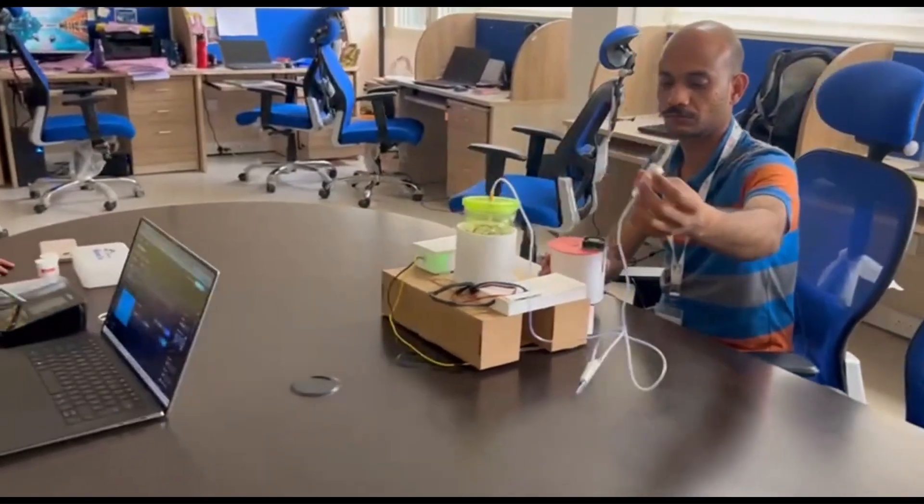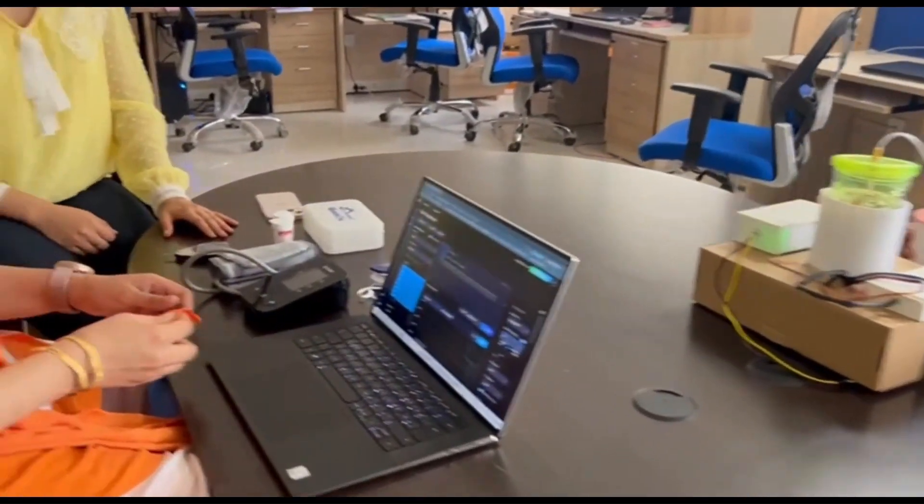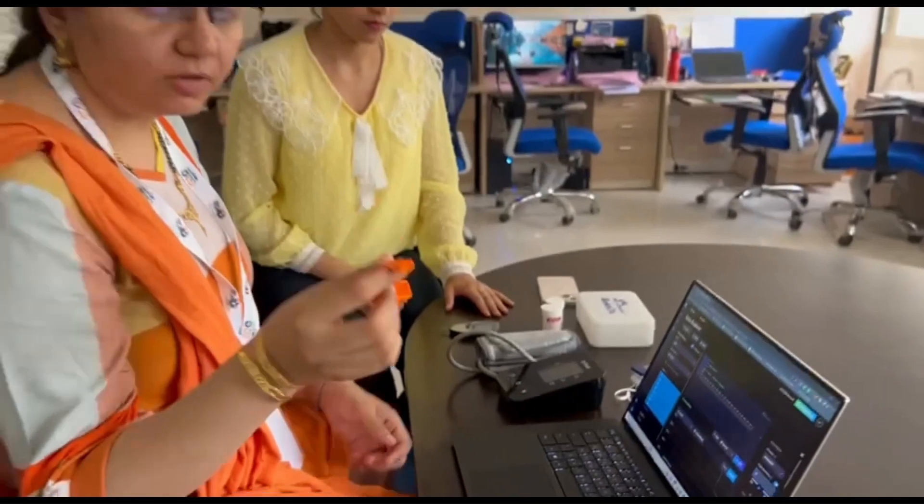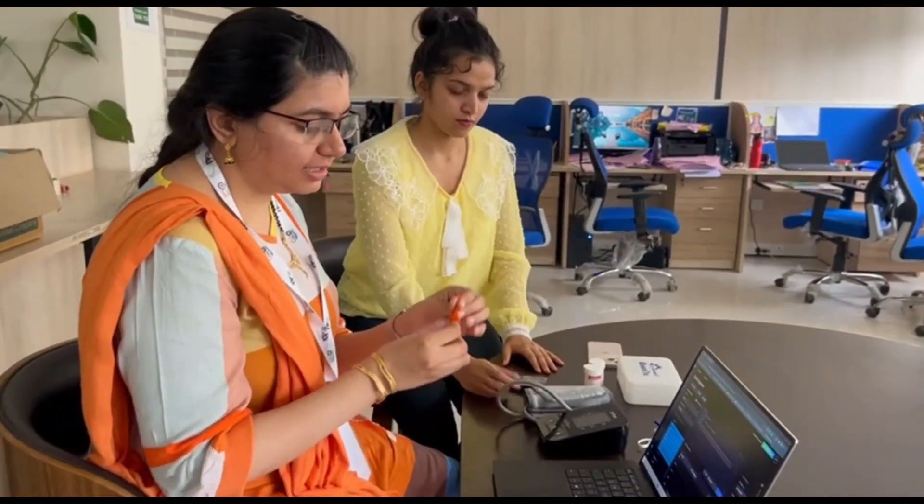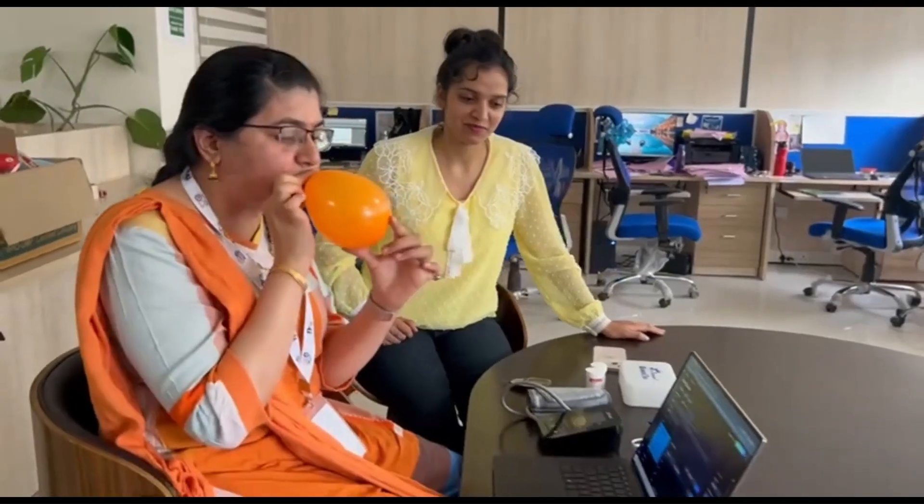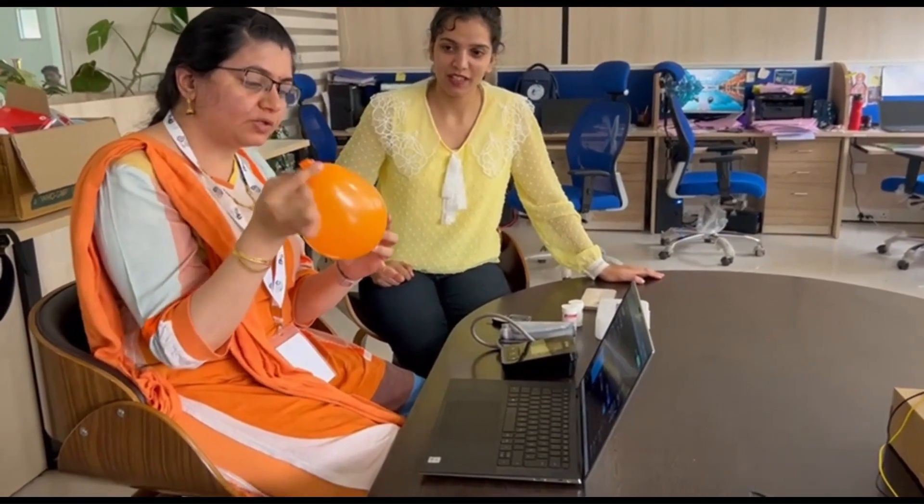To start with the demonstration, I collect my breath sample by blowing into the balloon and handing it over to my teammate. As demonstrated in the video, we need to blow the balloon to a legitimate size of 6 to 7 inches so that we have an adequate amount of breath sample for processing with our device.